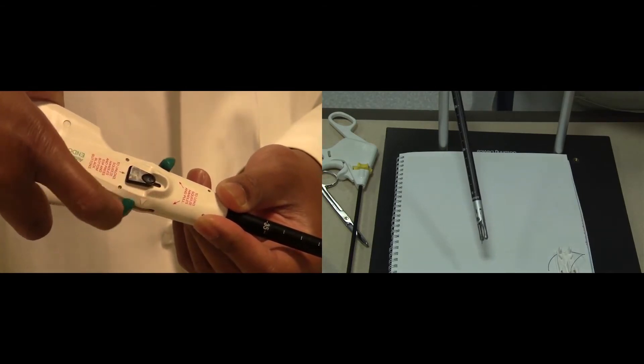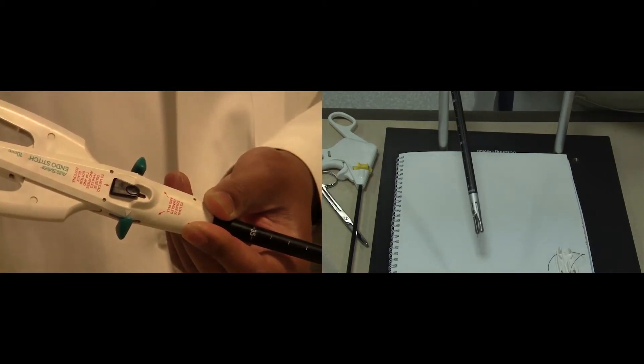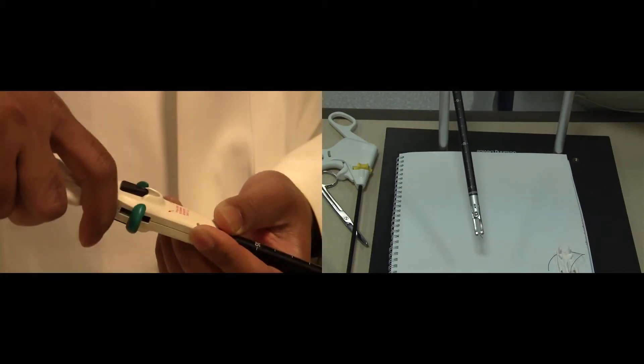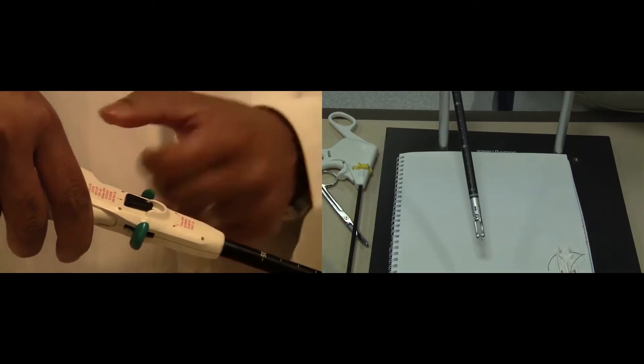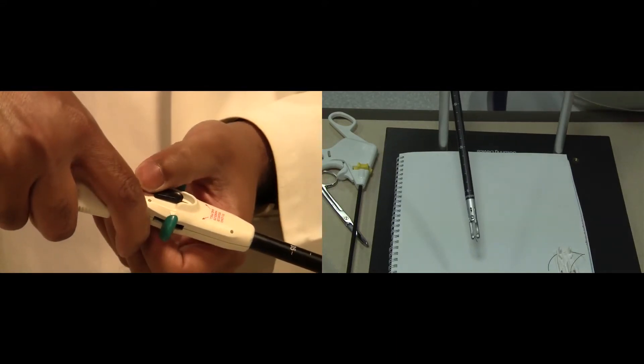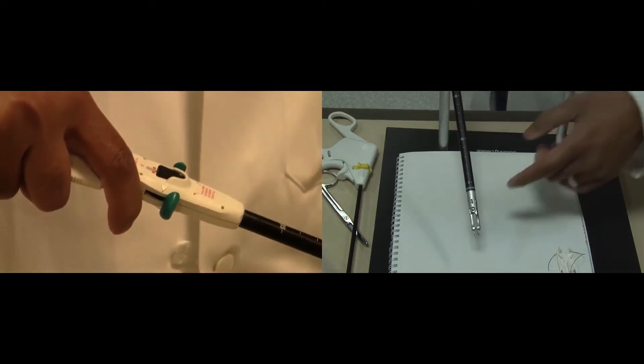Not up nor down, but in the closed position in the middle. By holding the device tight, advance the black knob forward. What that does is it causes the two prongs at the tip of the device to stick out.